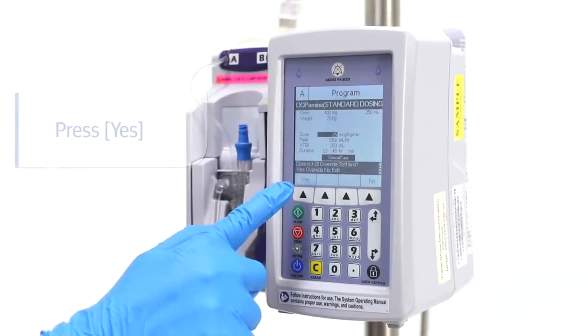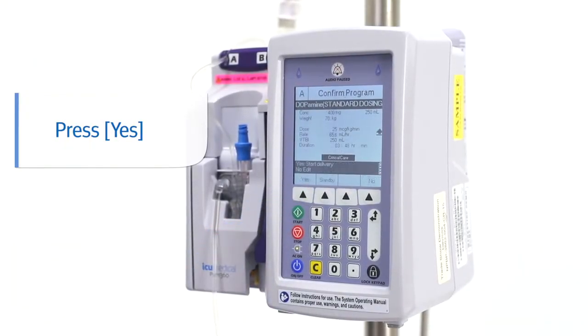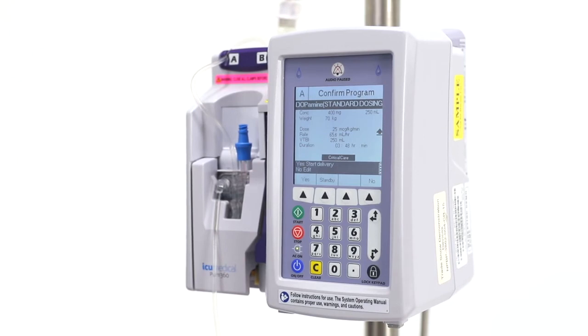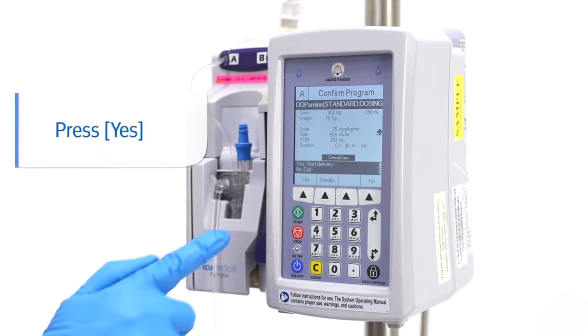You can press yes to override the soft limit. Finally, review the program and confirm by pressing the yes key.